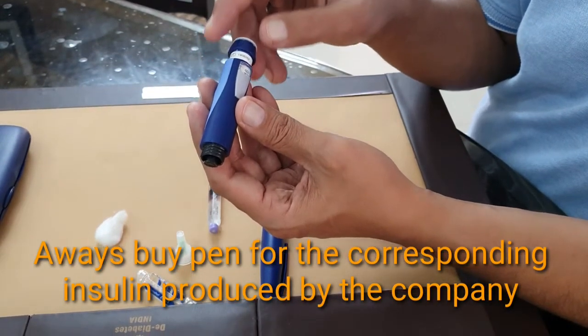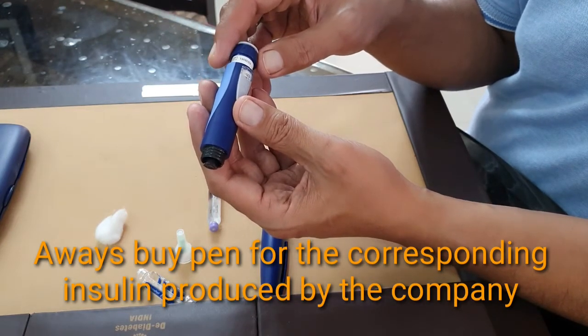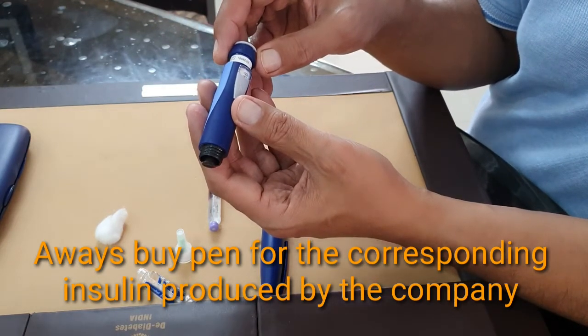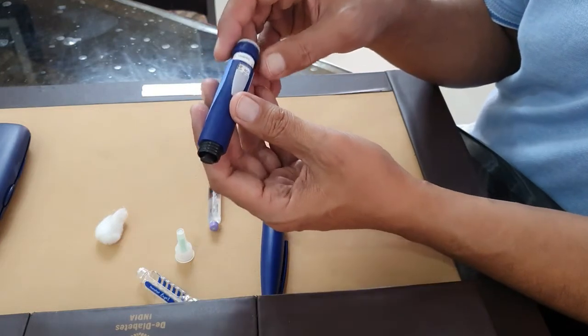If you change the company you may not get the actual measure of insulin. So you should buy a pen corresponding to the insulin which you are going to buy.